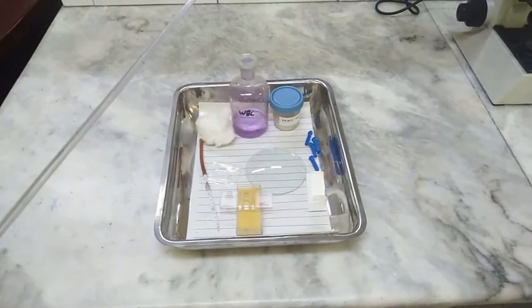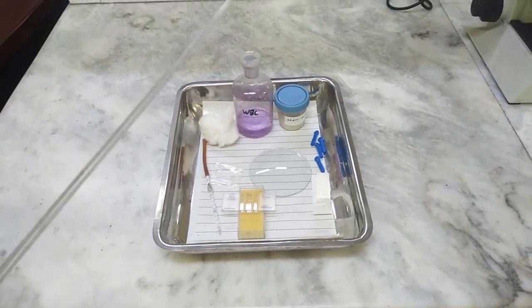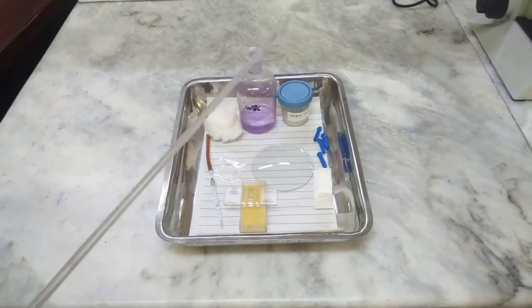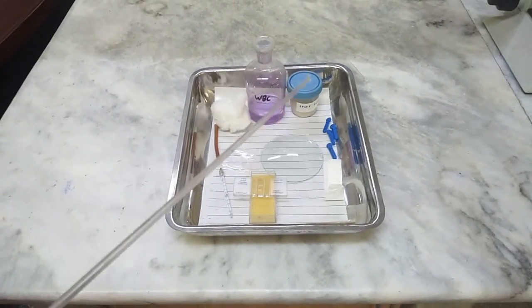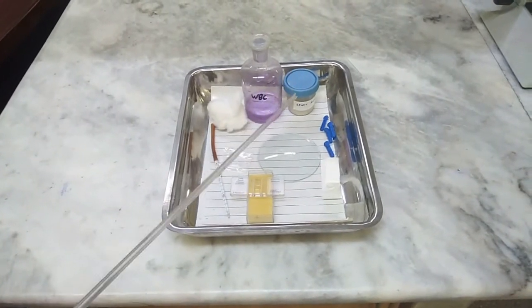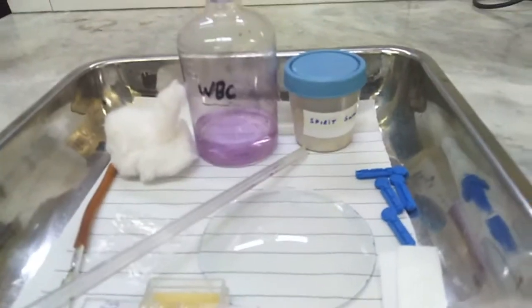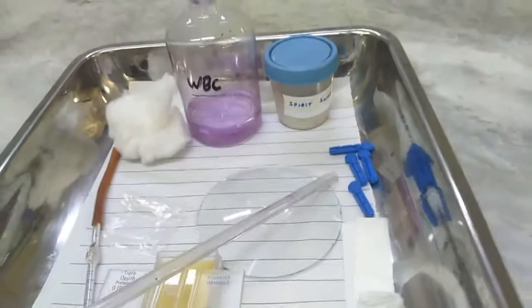Now we will discuss the apparatus used in this practical — the WBC count by Neubauer chamber. The first things needed are all the things required to take a blood sample from a subject under sterile conditions. The first thing needed is a spirit swab, and the second is a sterile lancet or pricking needle.